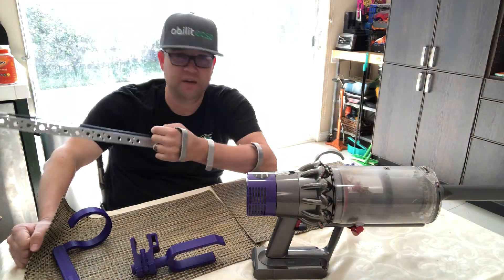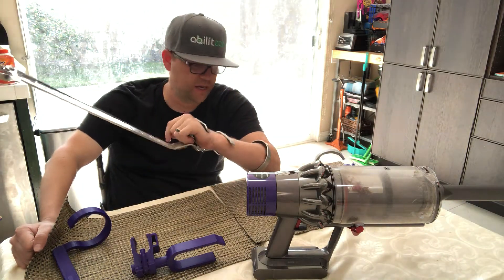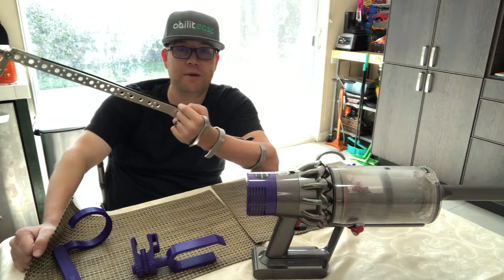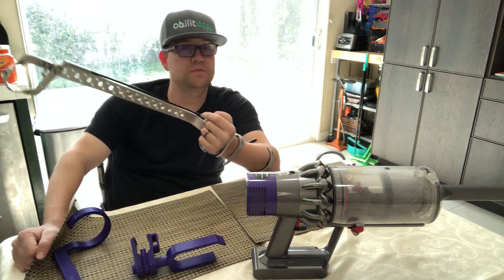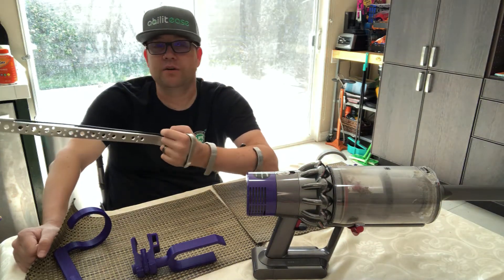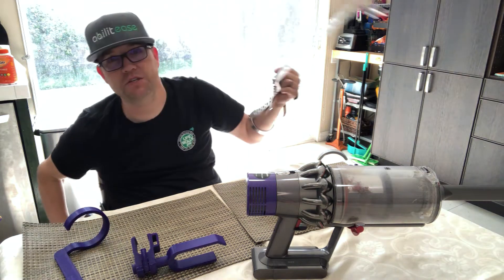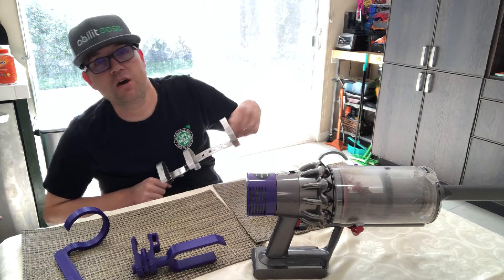The reacher allows me to bend my wrist and engage its teeth. I use it every day for so many things. If you have wrist extension you're in a sweet spot, and even if you have no wrist extension I believe they have a sip-and-puff version. This product enables me to be very independent doing a lot of things.